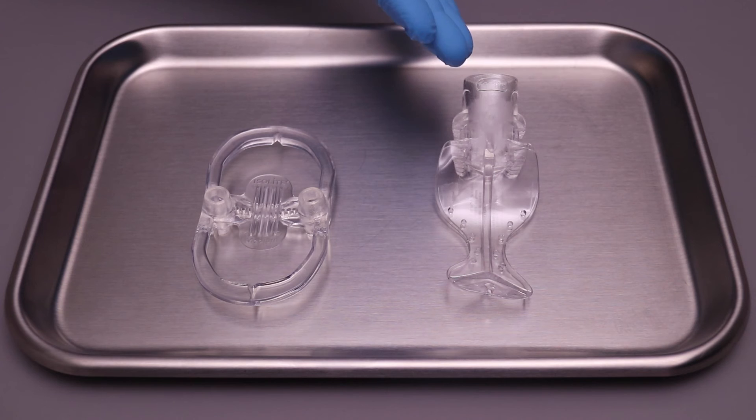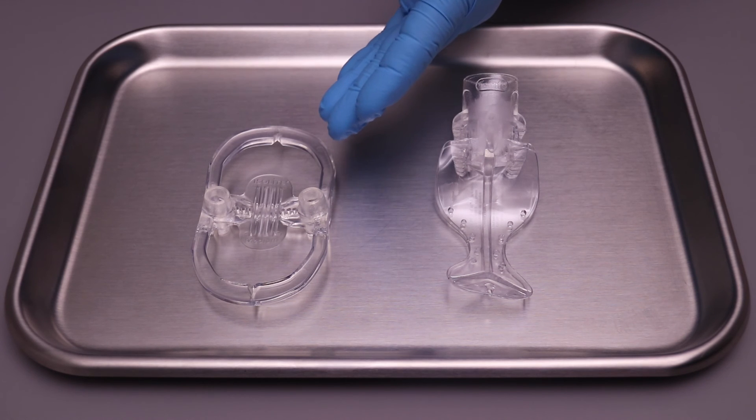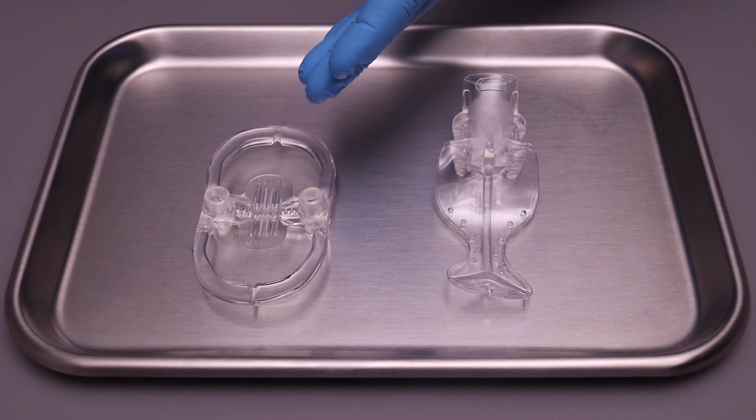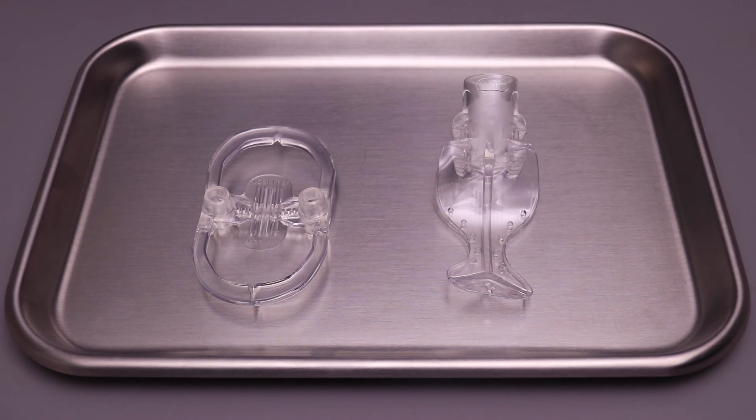The system is designed to work with both the posterior and anterior mouthpieces, posterior being perfect for quadrant-based dentistry and the anterior for procedures requiring bite-to-bite access in the anterior of the mouth.